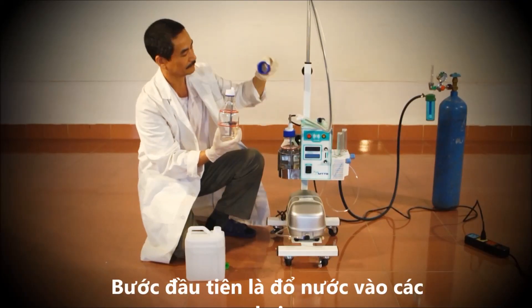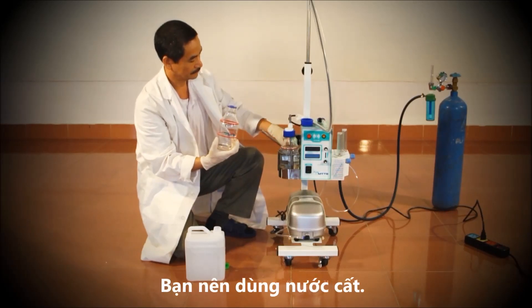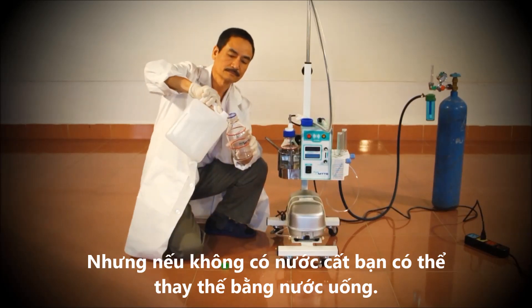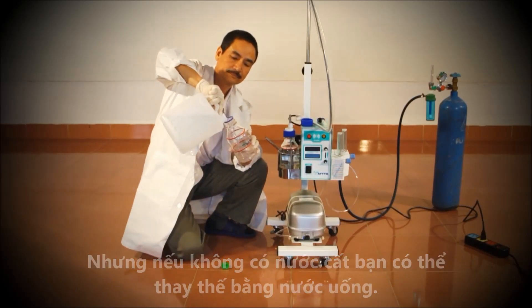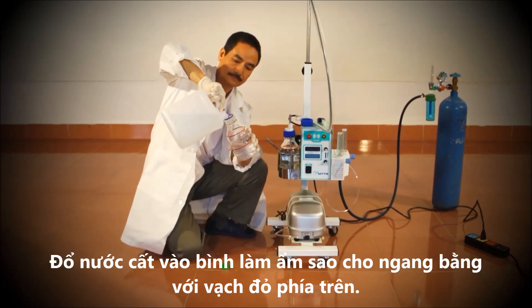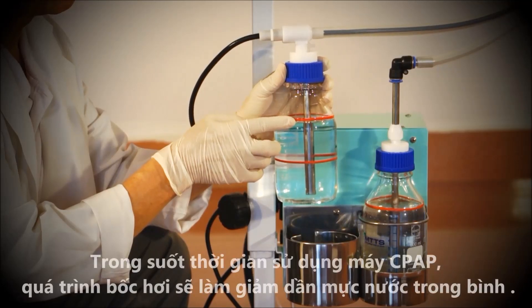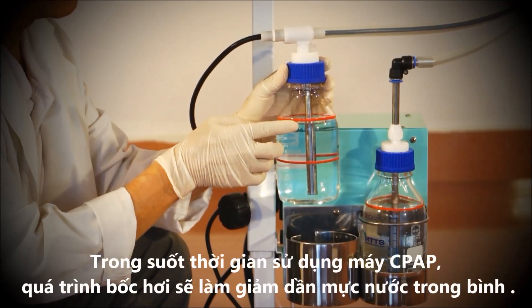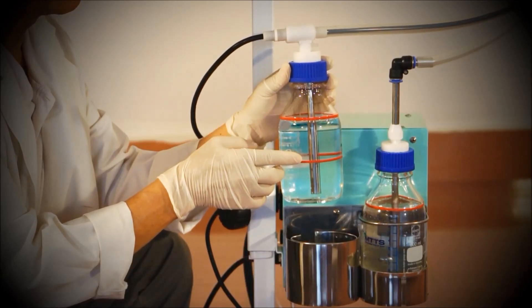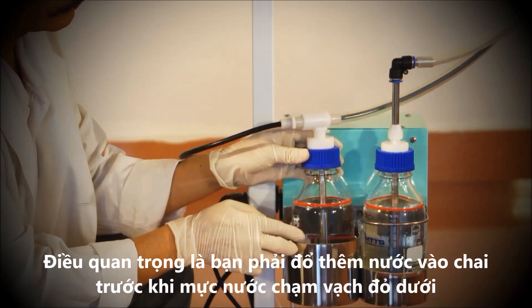The first step is to fill the bottles with water. You should use distilled water, but if distilled water is not available, drinking water can be used instead. Using the distilled water, fill the humidifier bottle up to the top red line. The evaporation process will decrease the water level during CPAP therapy. It is important to refill the bottle as soon as the level nears the bottom red line.